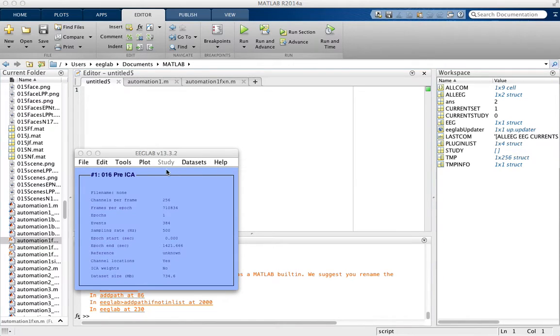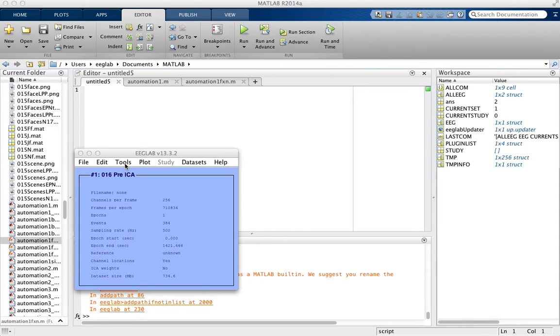This is how to remove bad channels. For example, we want to remove the channels right around the face because they're picking up too much noise.